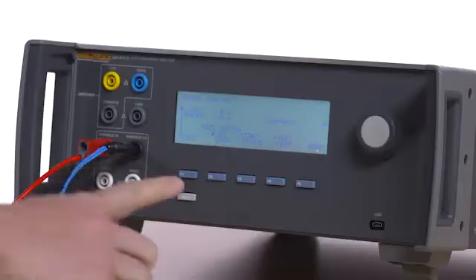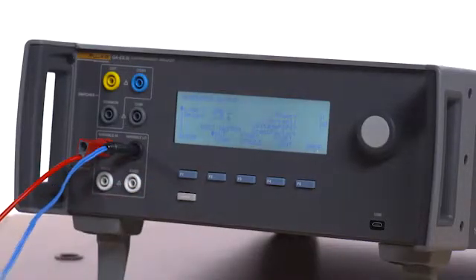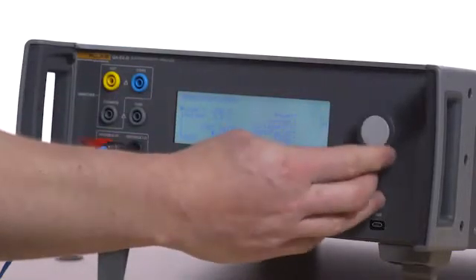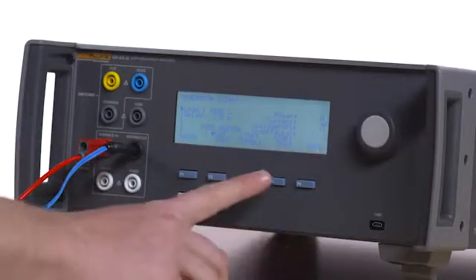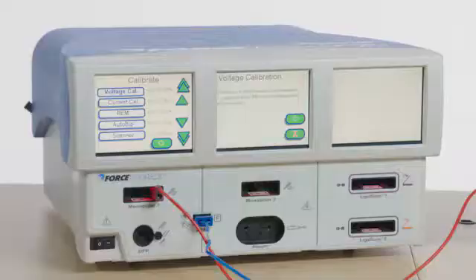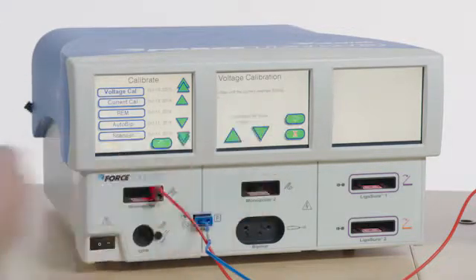Click the QAES3 back button and then press F1 for generator output. Select 1000 ohm load and then F4 for start continuous. Follow the on-screen instructions to calibrate with 1000 ohms.